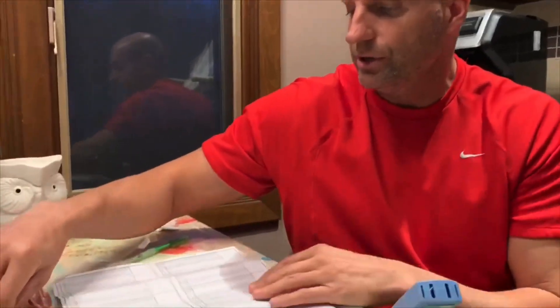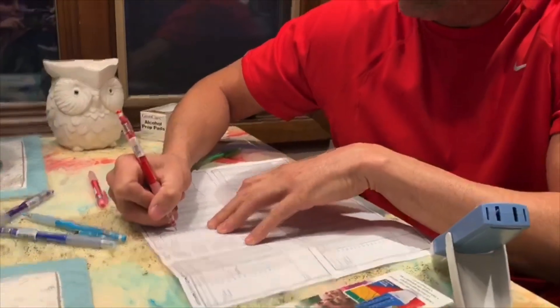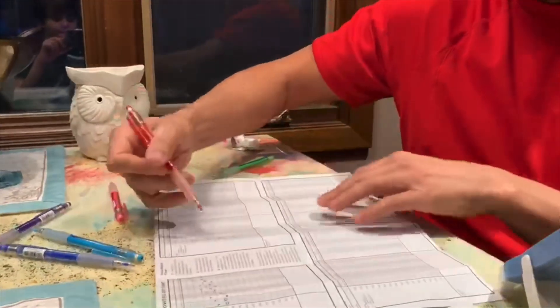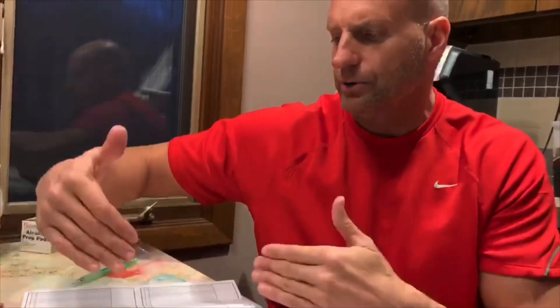So we're going to chart everybody — Dad got 630. Every day we'll do three blows each and put the results on this graph. If we start to see numbers go down or change, we'll know there's a possible infection brewing in the lungs, which is really the first sign. If you've never done anything like this, this is a great tool to use with your family.